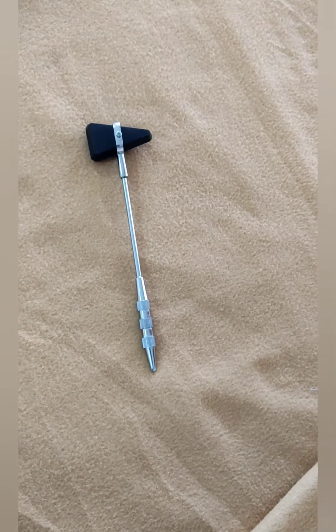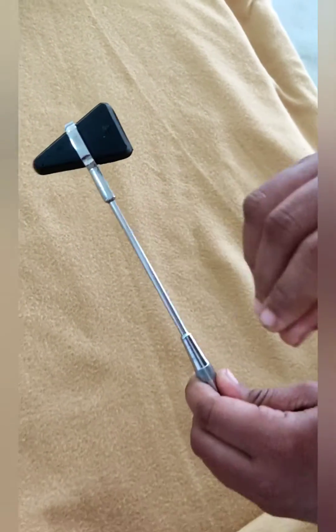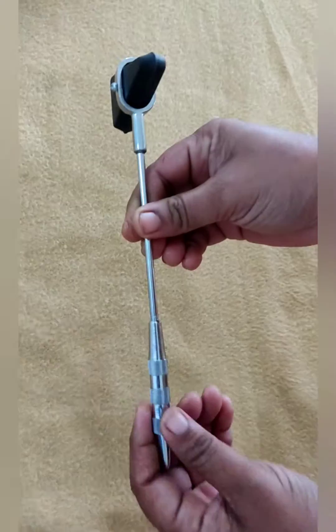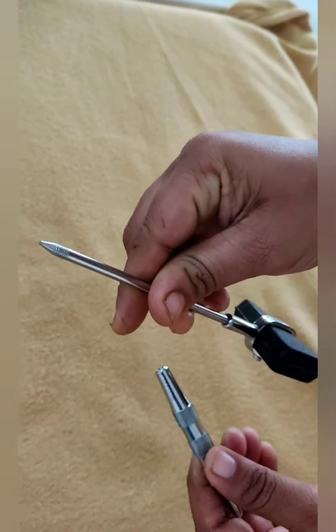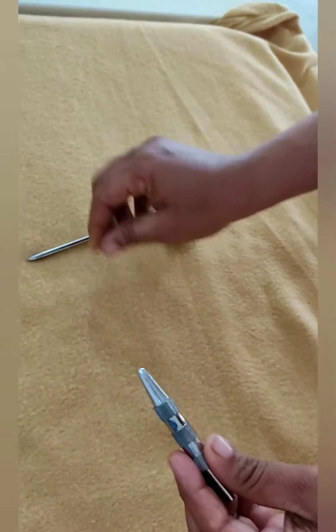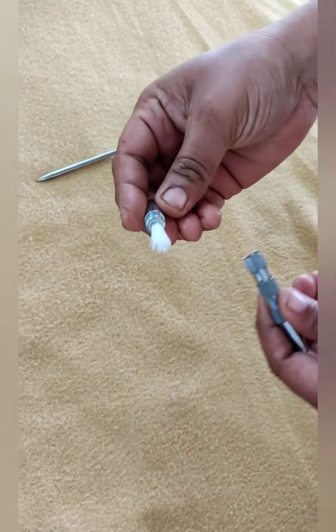The head of the knee hammer is made of thermoplastic rubber, which is attached to medically approved iron. The other end has a brush with fine bristles of plastic. The handle of the knee hammer has a pointed tip on the other end, and the brush of plastic fibers is used for eliciting cutaneous and plantar reflexes.